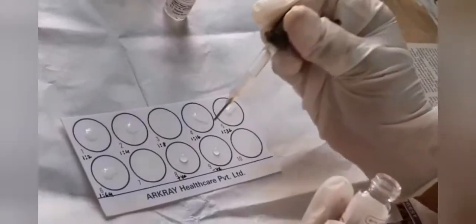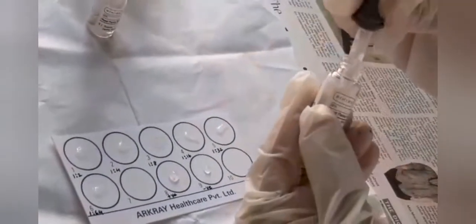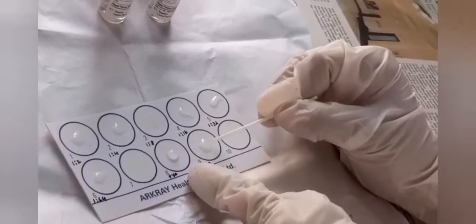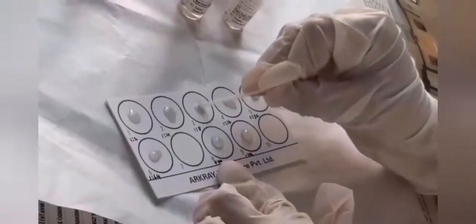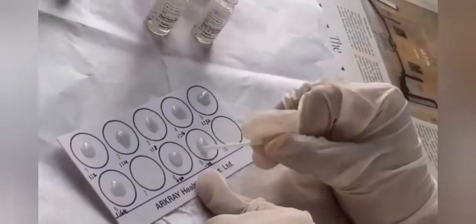Add a drop of positive control serum to the ring labeled positive, and add a drop of negative control serum to the ring labeled negative. Mix thoroughly with the applicator stick, making sure to use a fresh side of the stick for each ring. Add a drop of antigen to every ring. After thorough mixing, discard the used applicator sticks and droppers into the Dettol solution.